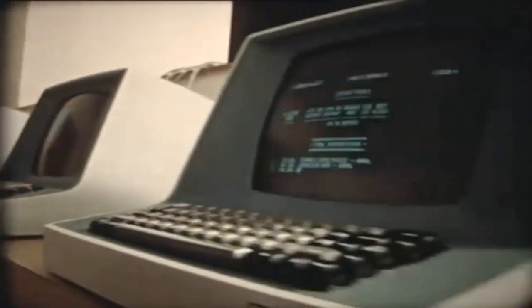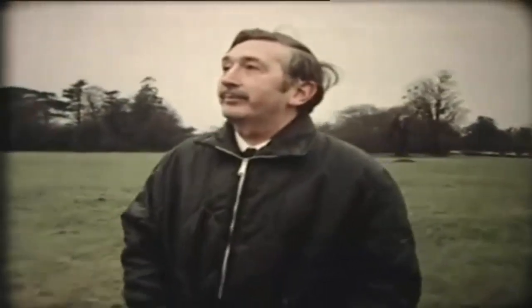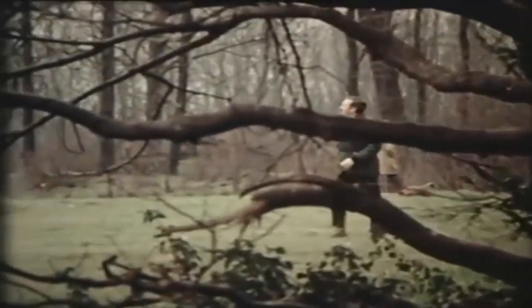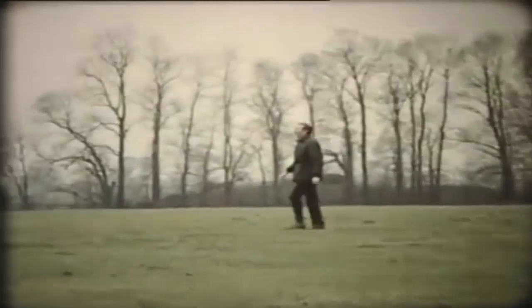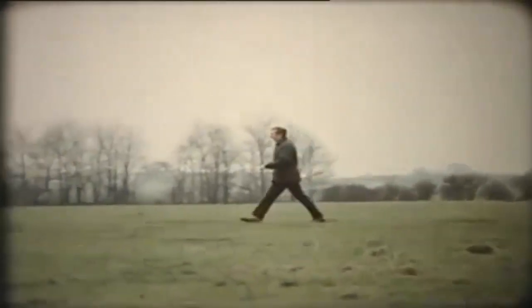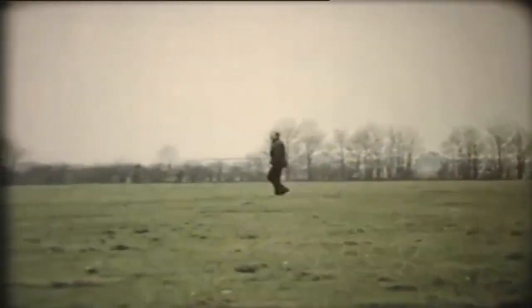Godfrey Hounsfield has gained many international awards, but the man who first coupled the computer with X-rays is modest about his success. 'I think I'm very lucky to have thought of this idea. I was thinking about it quite a lot, wandering around the countryside. Things seem to just have dropped into place like a jigsaw right from the very start. I get quite a number of letters from people who've had scans, had an operation, and have written thanking me very much for the scanner. It is very gratifying to know that I may have helped a little towards the conquest of disease.'